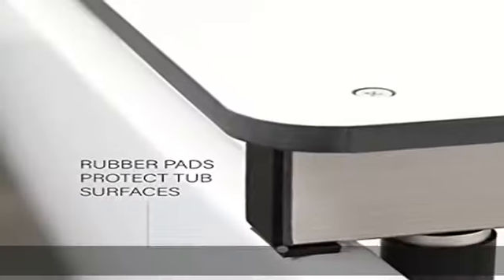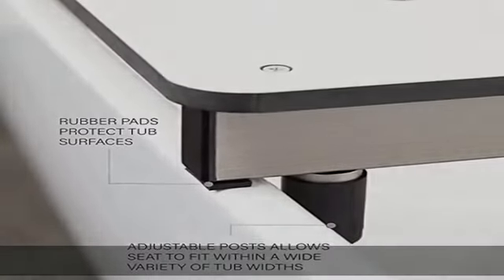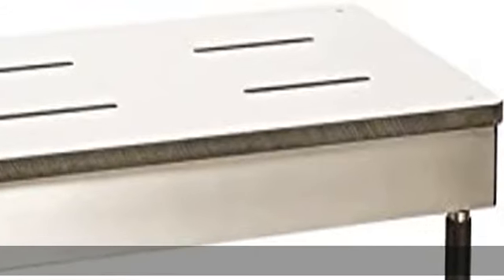Convenience: Removable tub seat and adjustable stabilizing posts securely lock seat in place and allow it to fit within a wide variety of tub widths.